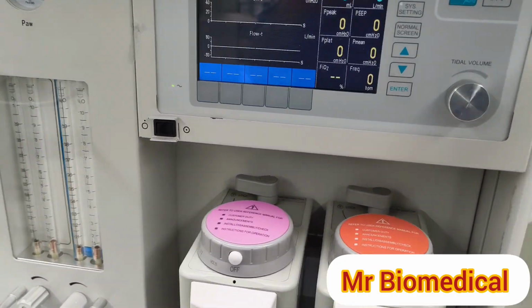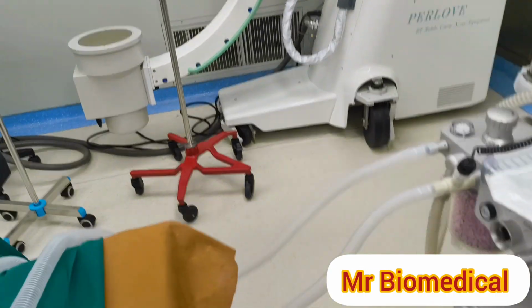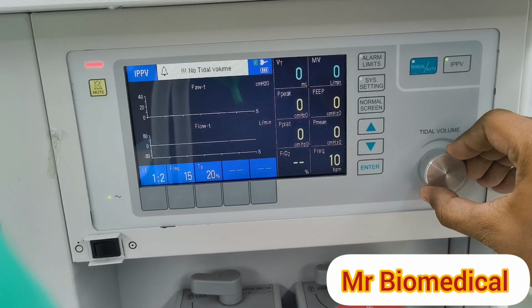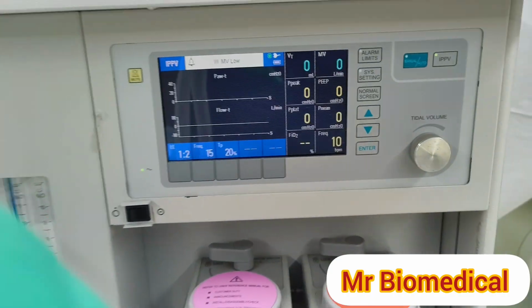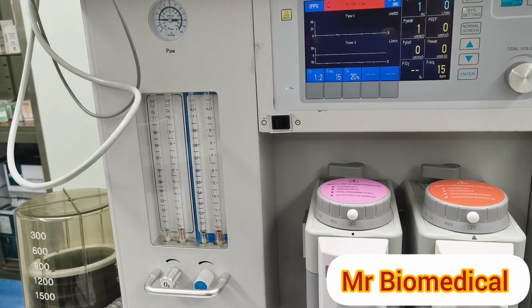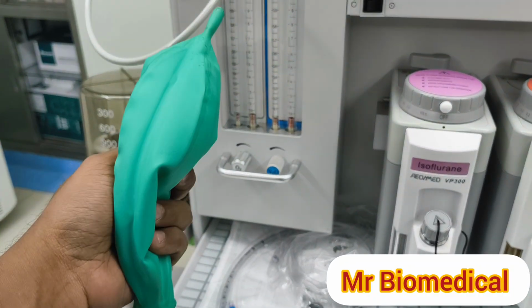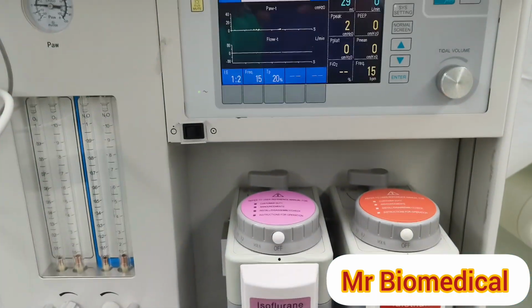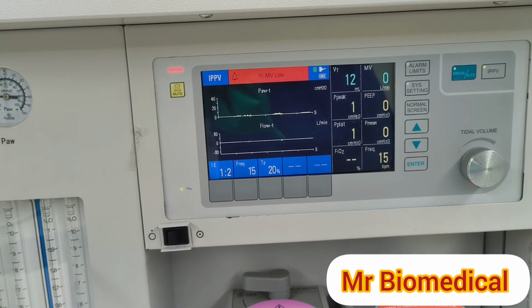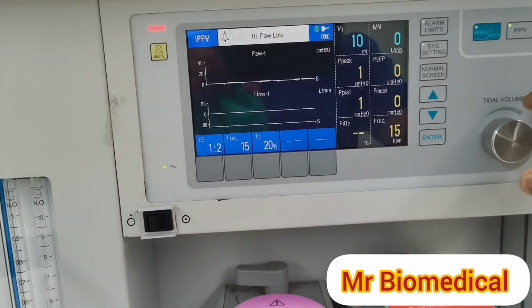In this method you can choose only some settings. Now it is on. No tidal volume, in the sense we have to rotate this knob slowly to get the tidal volume. Tidal volume is calculated like this: if you have 50 kg of weight, 50 kg times 7 gives 350, right? So we have to put 350. Since I have a small reservoir bag, I am going to put 300 or 400. I want to make sure tidal volume is rising up to 300. After 2 or 3 breaths it will show you the exact value of VT, meaning tidal volume.